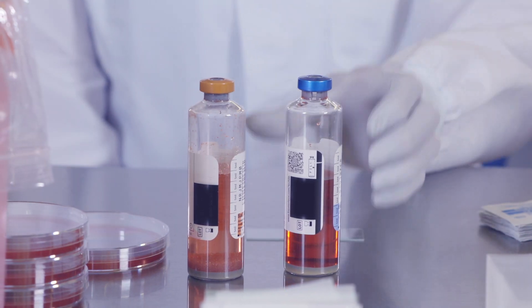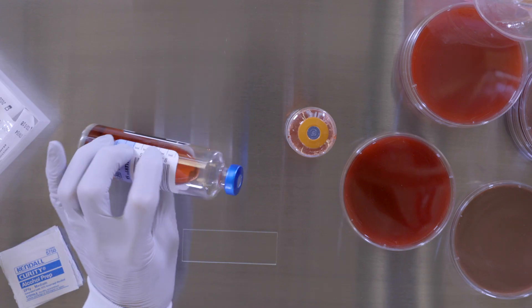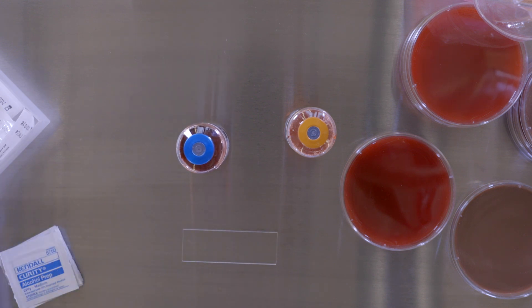Before starting the procedure, gently agitate the culture bottle to mix contents. If you are using bottles containing resin beads, allow beads to resettle after agitating.